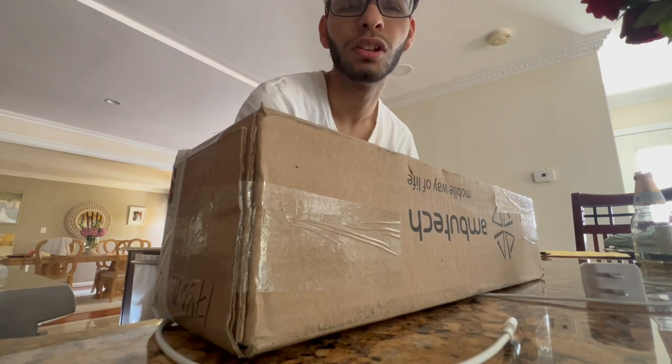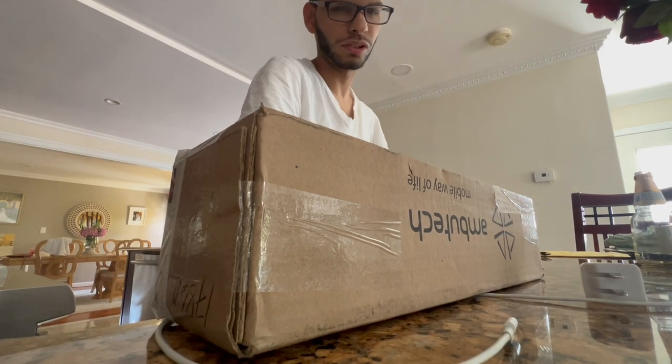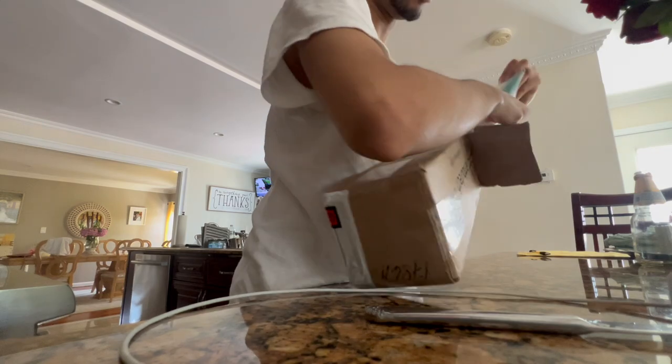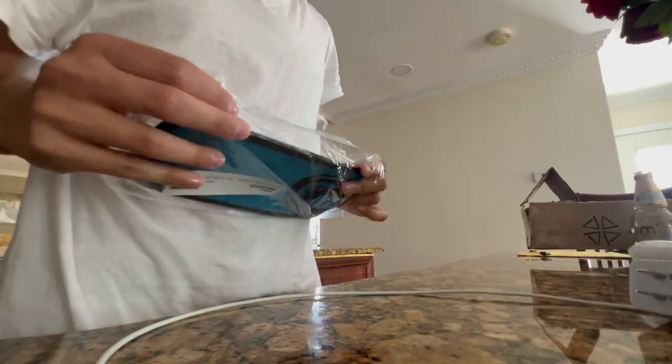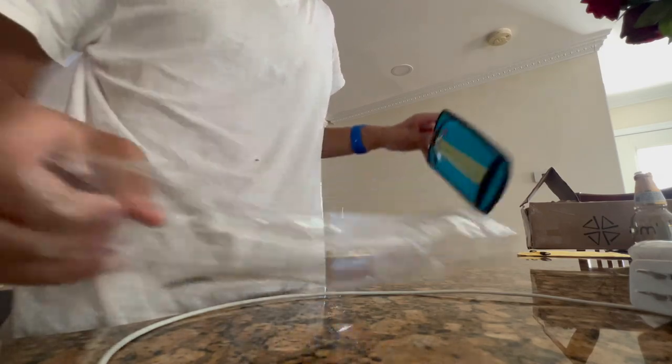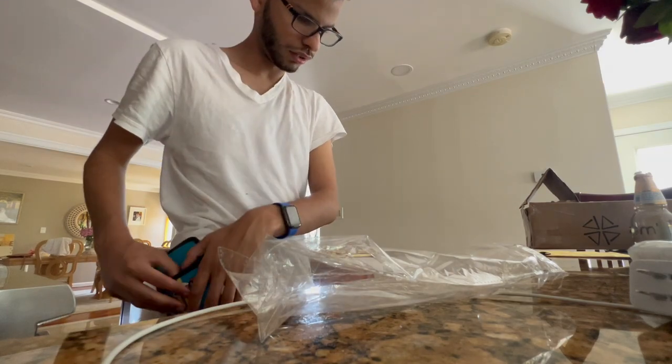Hopefully you guys could see me. I'll try to angle it to the best of my ability. Let me just grab a knife and open it — going to have to use a kitchen knife. Okay, I'm in the struggle. All right, this works. This is a cane pouch, and the whole point of it is to clip on my belt.